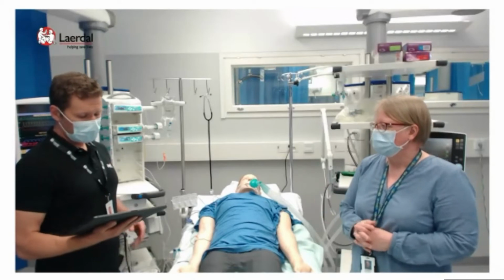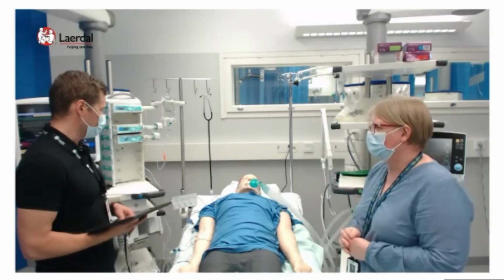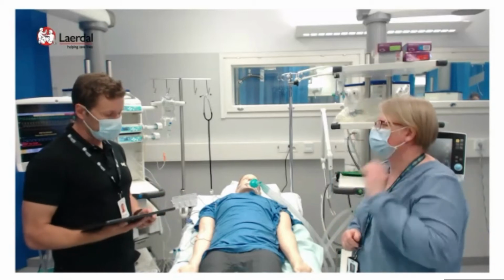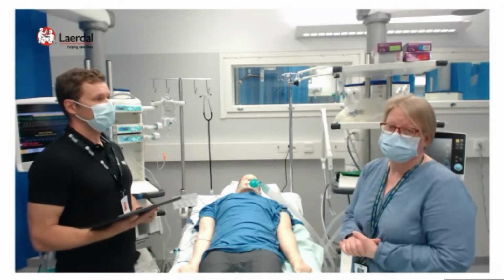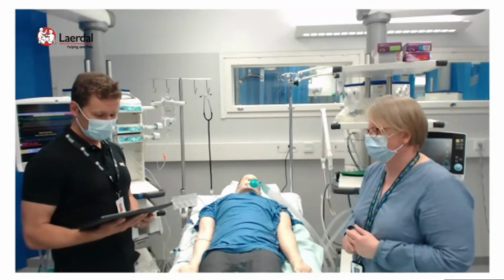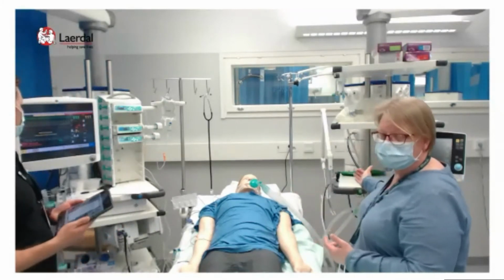Yeah, there's a couple of comments, and also to give some midazolam. So that was probably for the first question, which is correct. And then there's a question: how much is the PEEP now? The PEEP in the patient right now is 8. So what would you change in the ventilator settings?